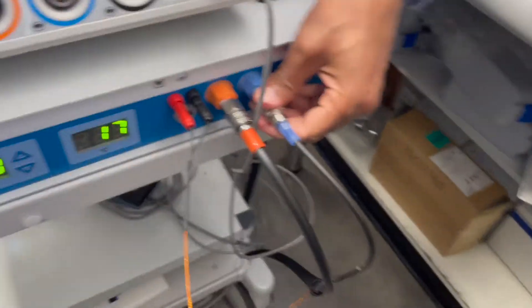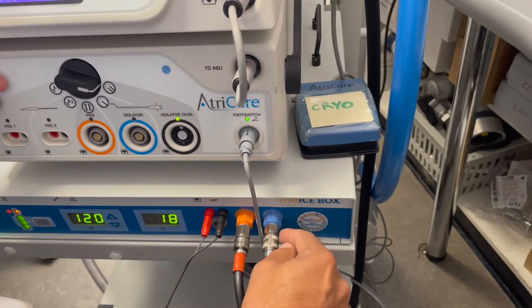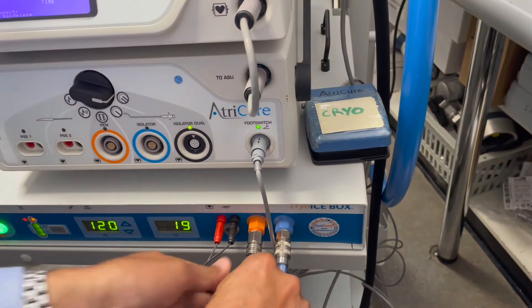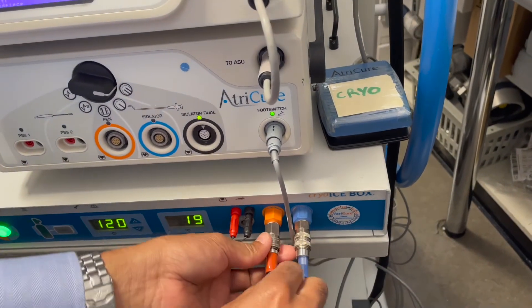For the purposes of completeness, you asked about whether you can remove this after venting so I'm going to remove it now. To remove this, remember when we connected it we pushed one and the second one you push the coupling back and you pushed it in. So for removal you've got to push the coupling back for both of them.